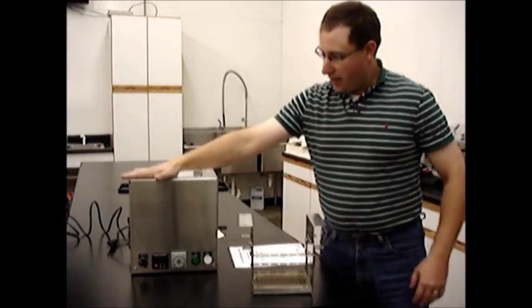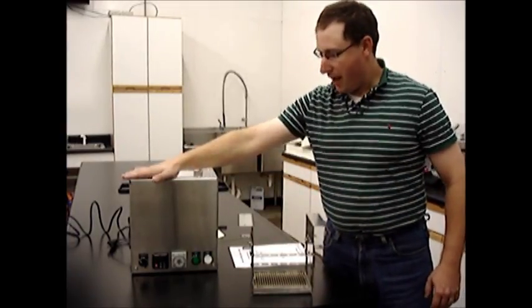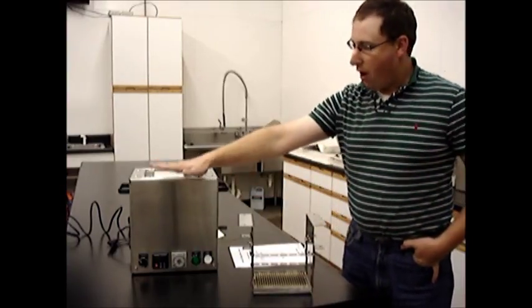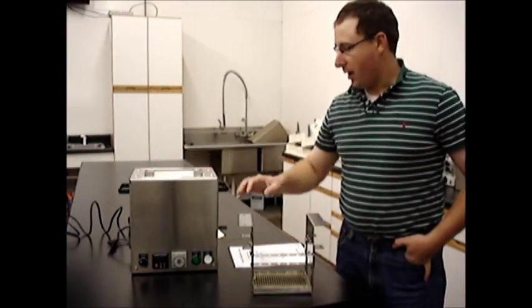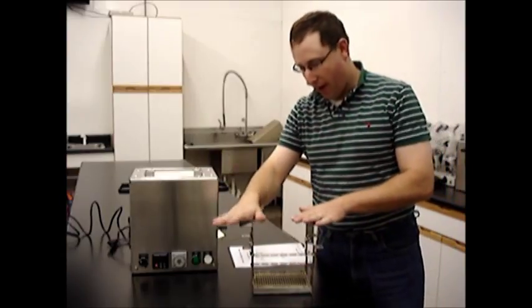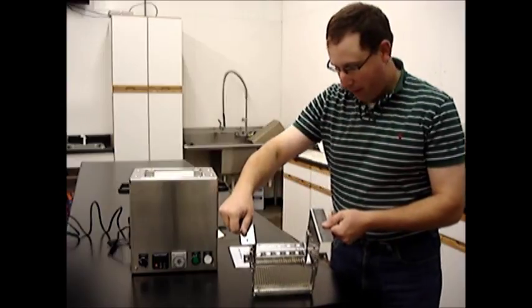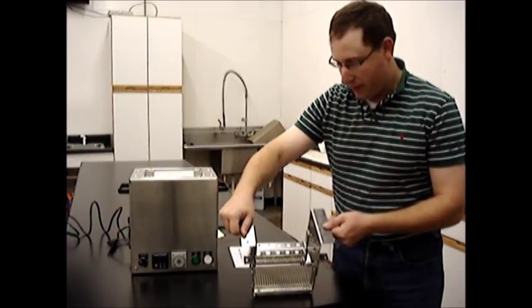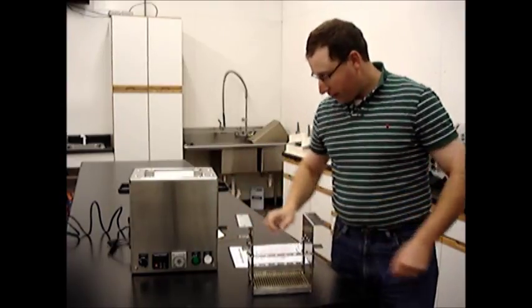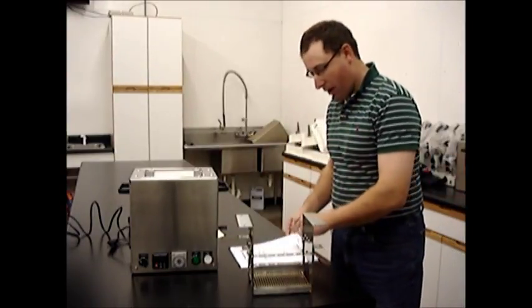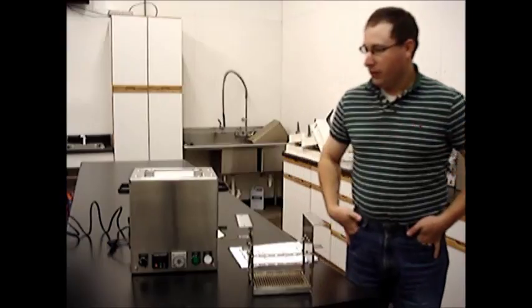It comes with what you see here, the stainless steel box that has all of your thermocouple and temperature monitoring devices all included in one package. It also comes with this stainless steel rack that holds 25 half cc straws and I've already got it loaded up with the half cc straws. It does come with a 5 year warranty on all parts and really a nice system.